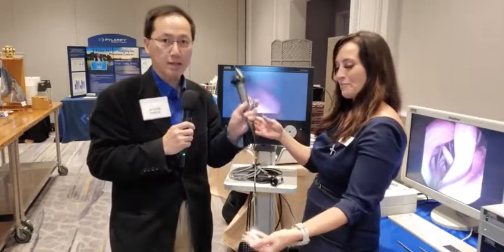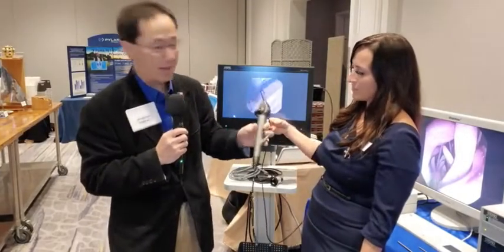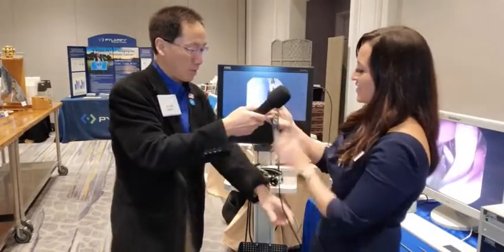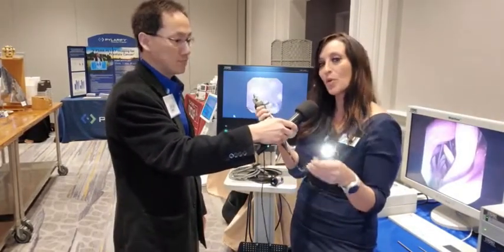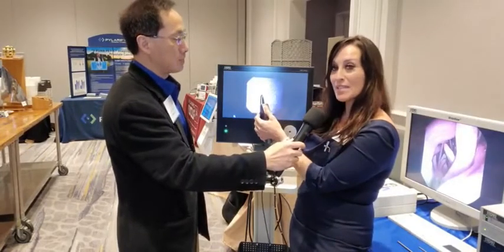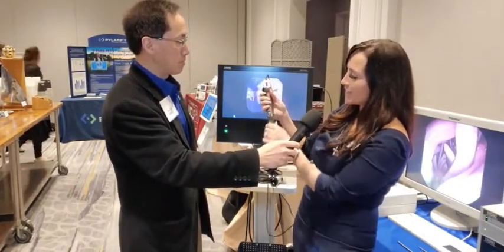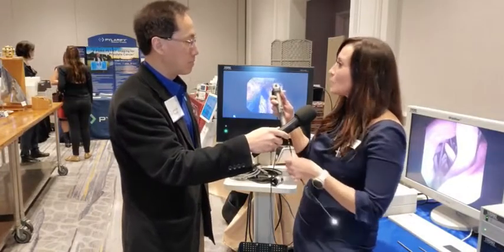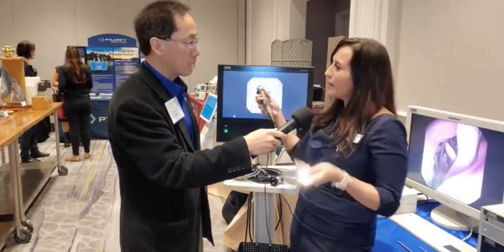This functions and feels just like a regular flexible cystoscope. The weight feels really good — not super heavy, not super light, so it doesn't feel cheap. I've already played with the articulation. So there are a couple of things about the C-View: it's our good-better-best option and it's perfect for the office — more cost effective. From top to bottom, you've got buttons to record video, take pictures, and do image capture. You can white balance from the scope itself. You've got your working channel and your shaft. The C-View has a reinforced shaft, so a lot less breakage than you're used to from former scopes. We also have a beveled, atraumatic tip, so it's safer and more gentle for the patient.